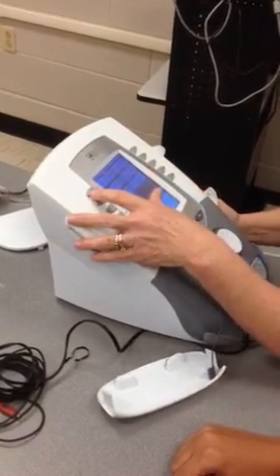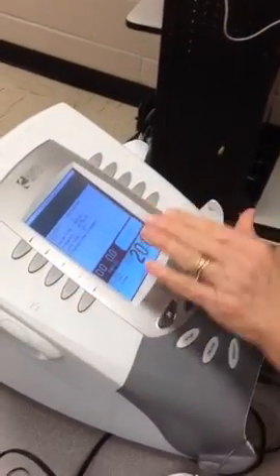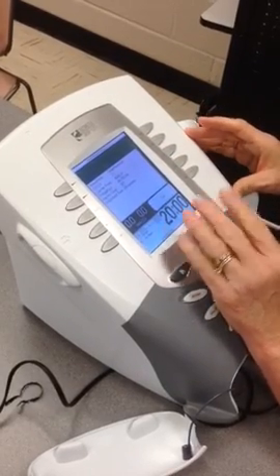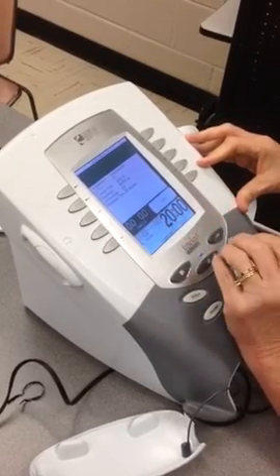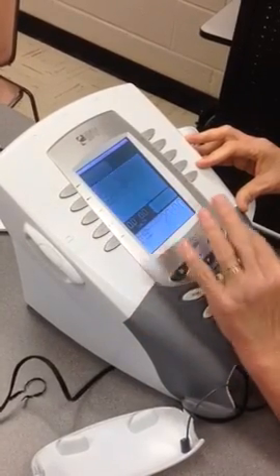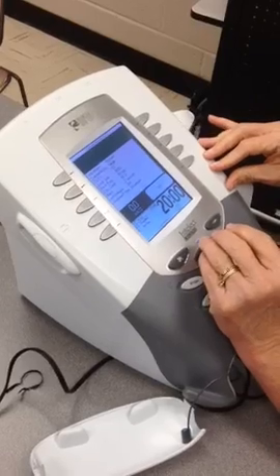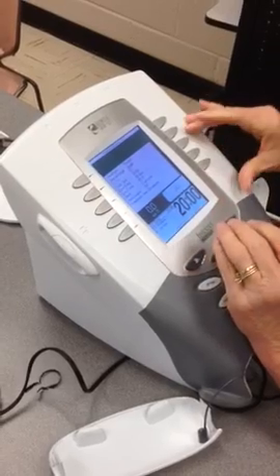So, if we're going to program interferential, you hit the interferential button, and then everything is pre-programmed. You can edit it if you want. You can edit some of the settings, but it's preset already to use interferential. So if you want to leave it on the pre-settings, you can. And then if you want to back up and choose Russian, it also is preset for Russian, so you can see the settings there, if you choose to use that one.